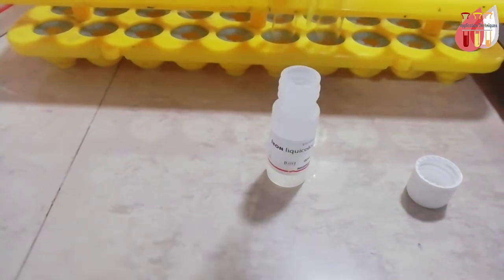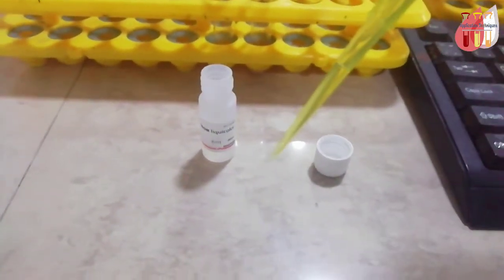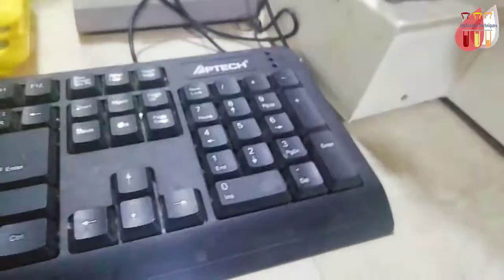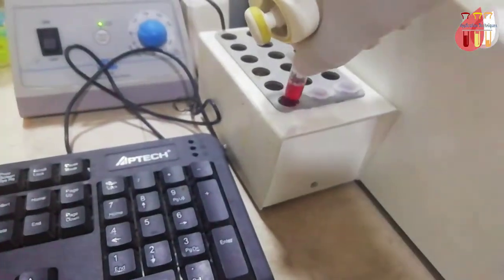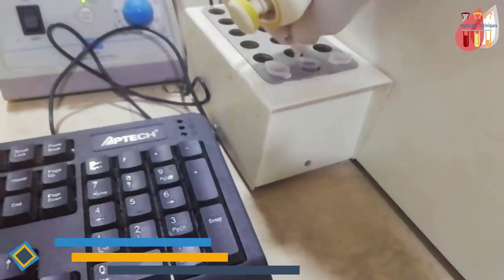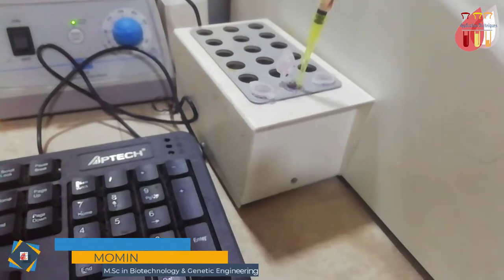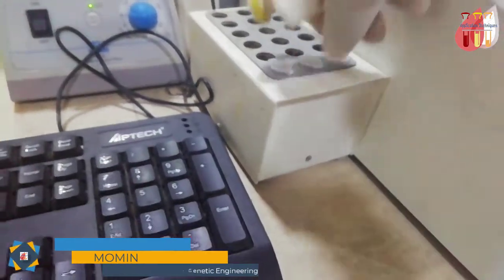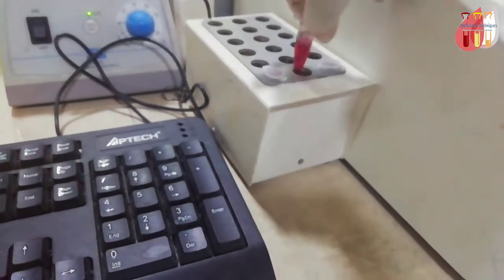For the blank, don't add anything. In the test tube, add 50 microliters and mix well.